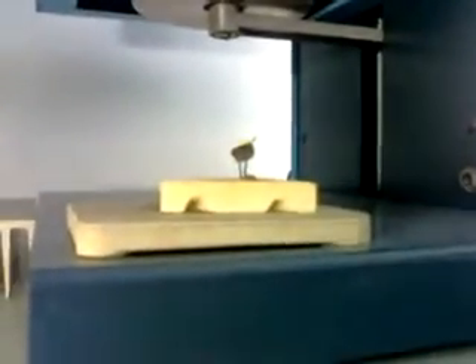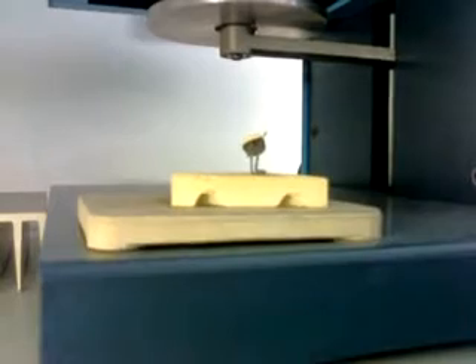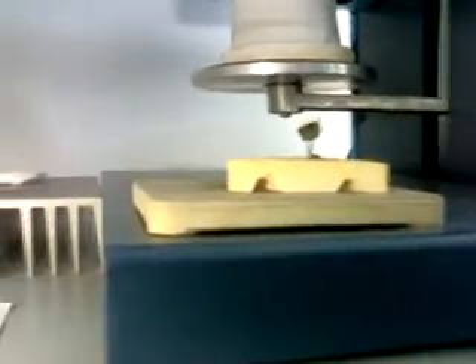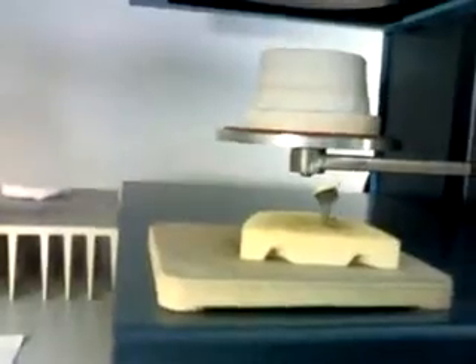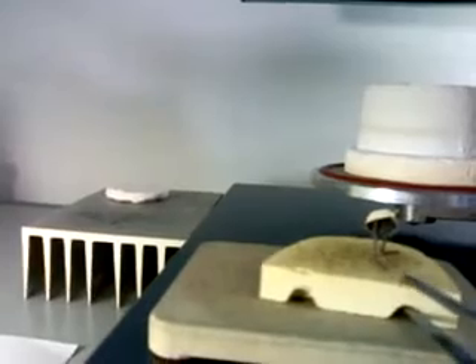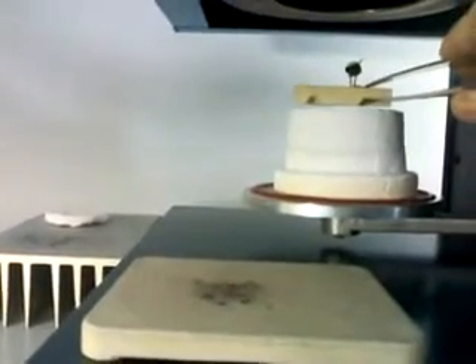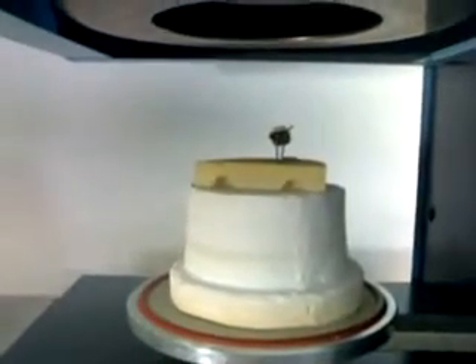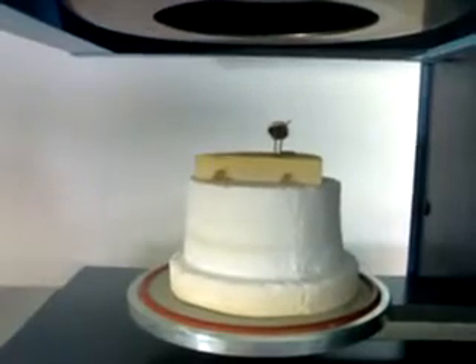We can open our platform door. We are ready to give the second bake. After that, the framework has been taken care of — it has been treated to be well masked and to have ceramic bond to it. One thing I didn't speak about was oxidation: the way the surface of the coping has oxidized during the metal treatment. This oxidation also helps to have a stronger bond with this laying mask of opaque, so the porcelain fused to the metal will have strength.